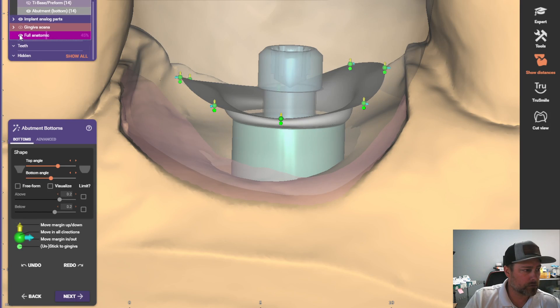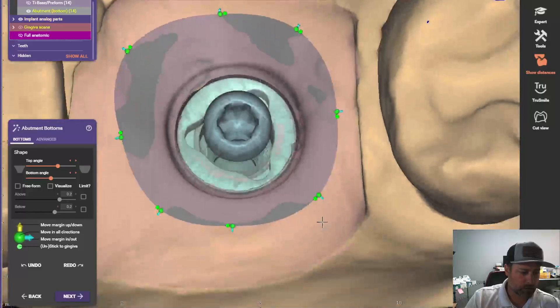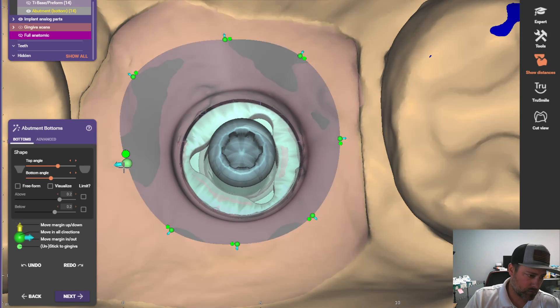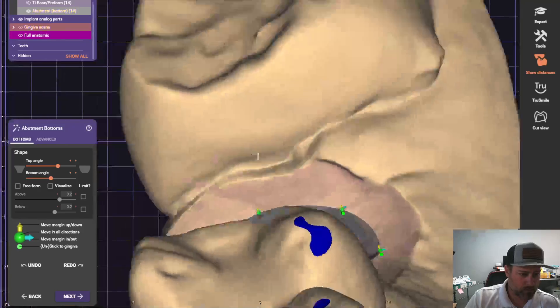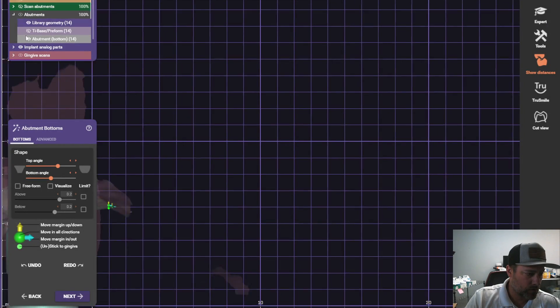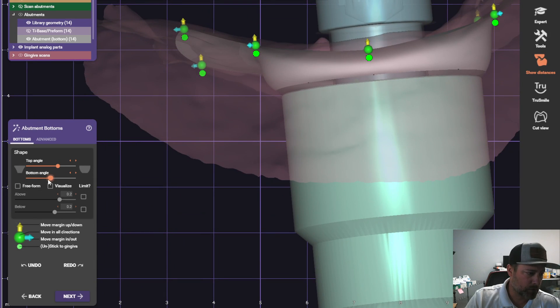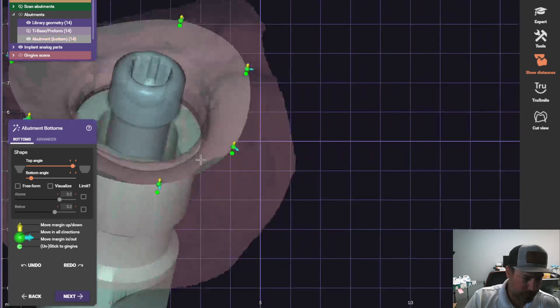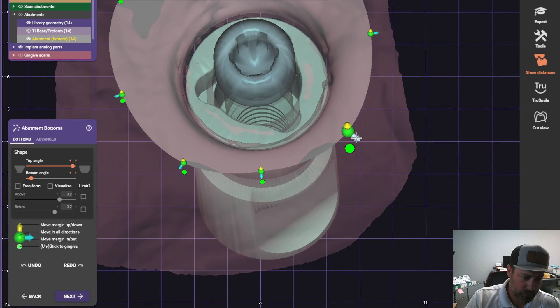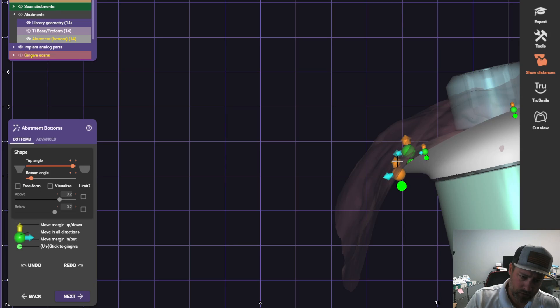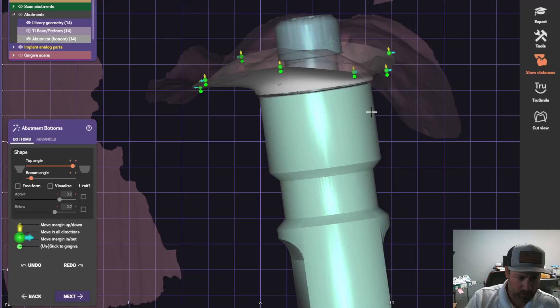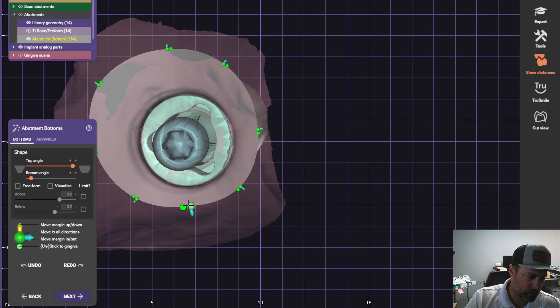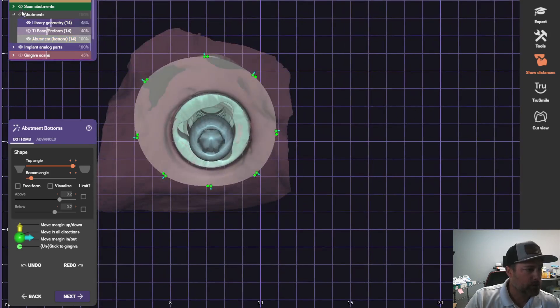Let's remove the crown. And this is actually above the tissue, so let's scoot this in a little bit. I always move the bottom angle over first, and then the top angle. Okay, we need to get rid of it. Drop this below the gum. Get these below the gums too. Trying to avoid any food trap areas. That's why I don't like the wax up feature. It's easier to create a clean surface area of the abutment.